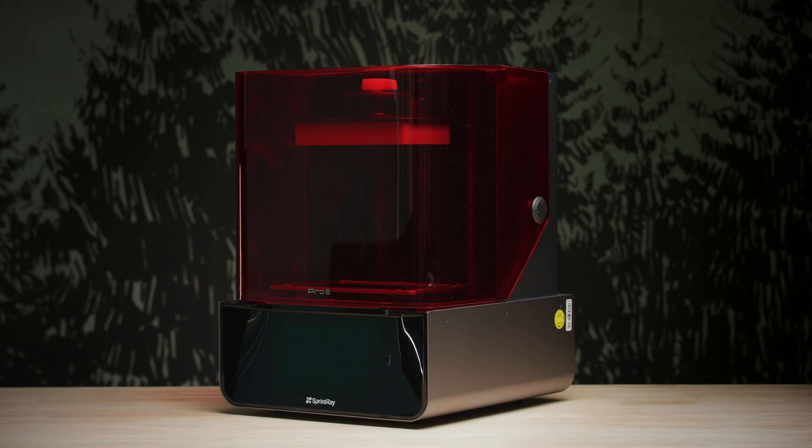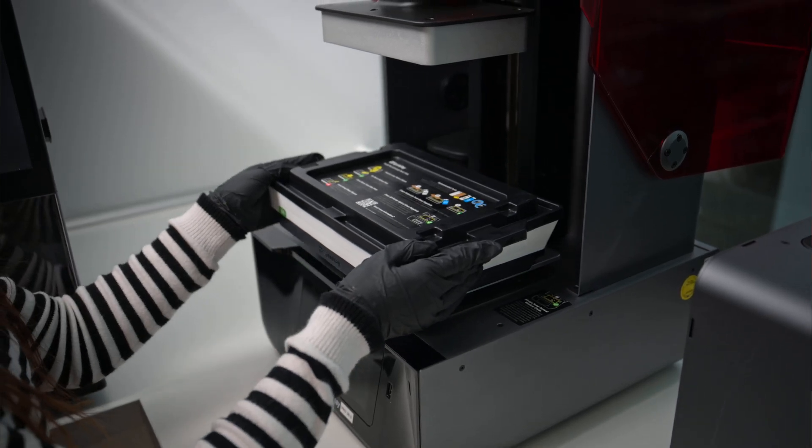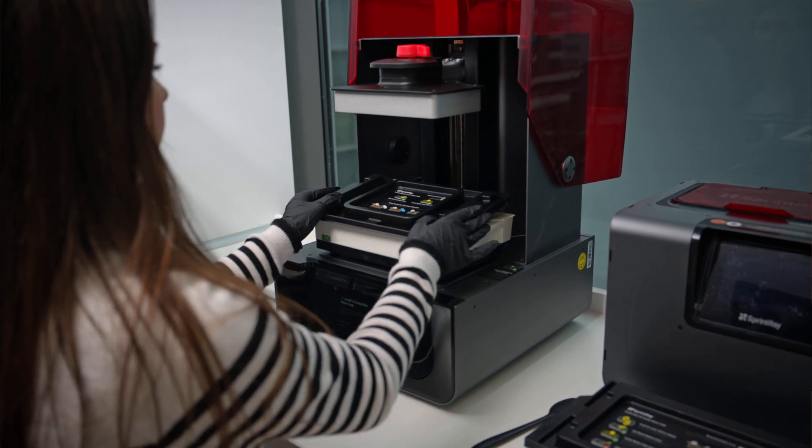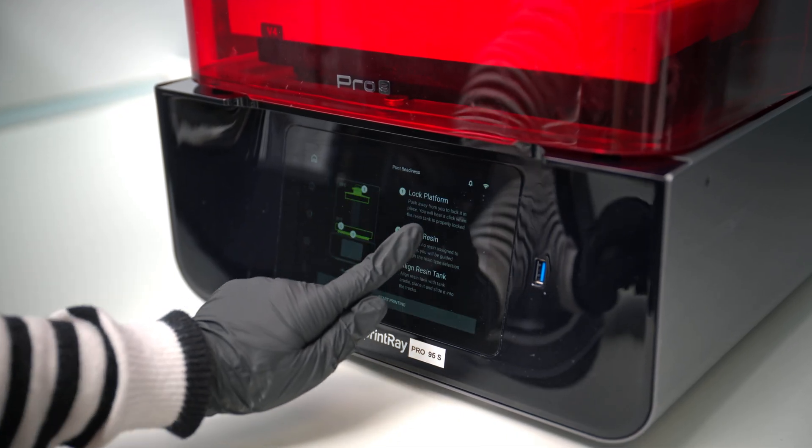If you're not sure which printer to invest in, watch our video on choosing the right printer. In this case, we're using the resin printer from Sprintray. The printer guides you through the necessary steps to ensure everything is set up correctly. Before you start printing, focus on these three steps: fill up the resin tank with your preferred material — you can switch between different materials after each print by easily swapping resin tanks; insert the resin tank with the liquid resin and use the tank lid to reduce the risk of spills and unwanted UV light exposure; and ensure the building platform is clean, as this is where your object will be constructed. The platform lowers into the resin tank and builds the object layer by layer. Once you've completed those steps, start the printing process by pressing the start button.